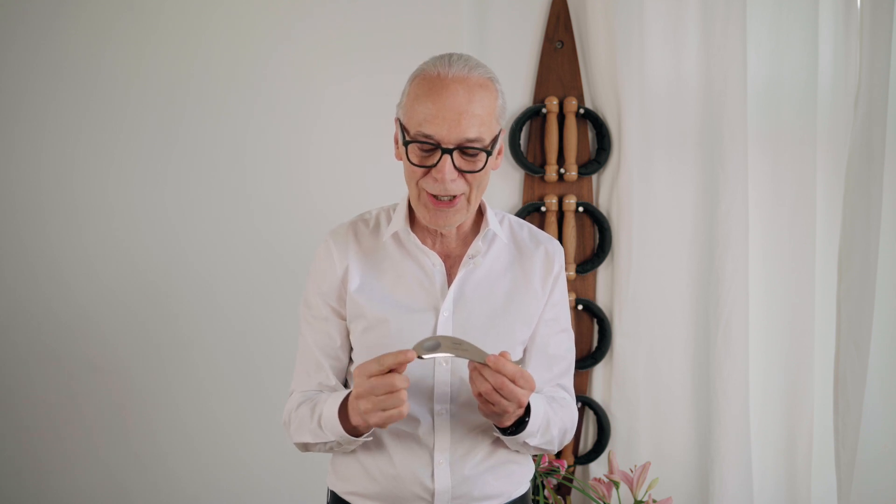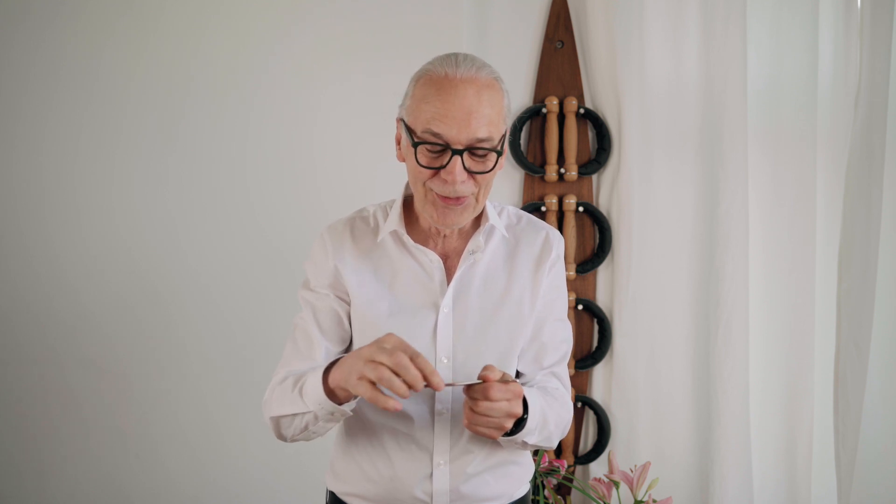First of all, it has several convex shapes where you have a more rounded or more sharp convex shape. But also you have two different concave shapes. On each of these sides, you have a more sharp angle, but also a more smooth angle. And you can find any sharp or smooth angle at the appropriate convex or concave side that you want to use.